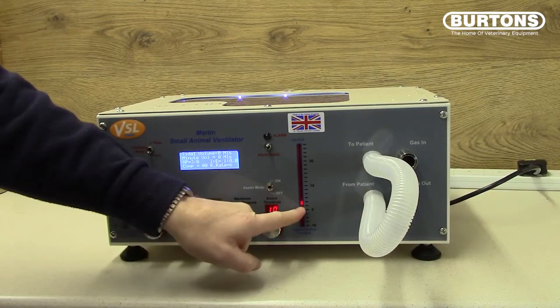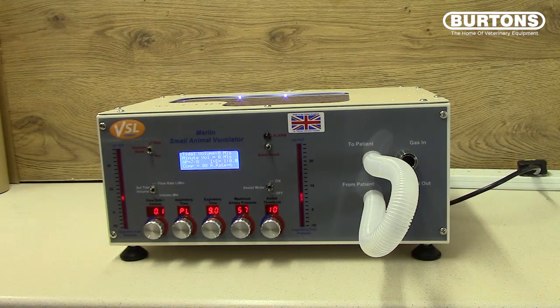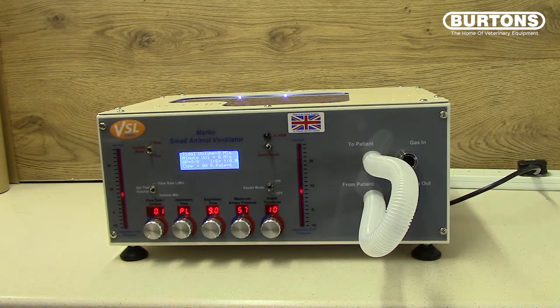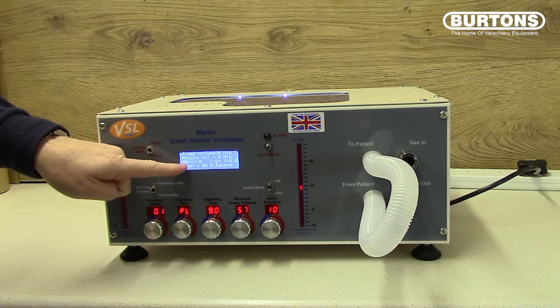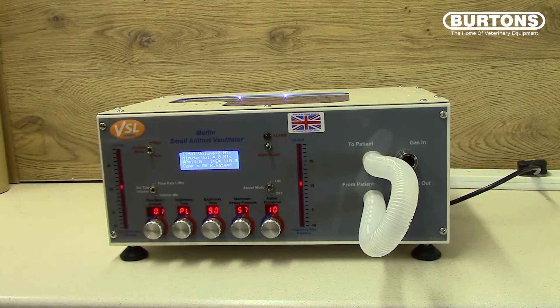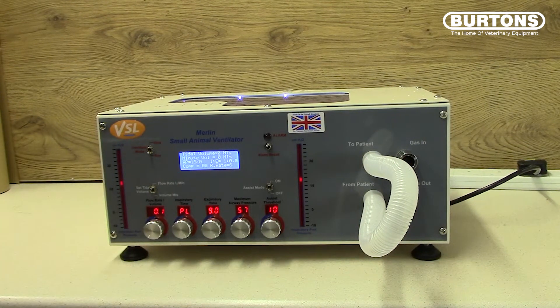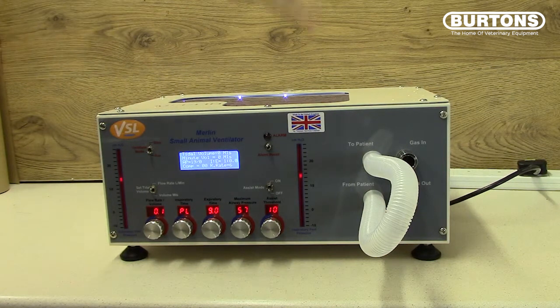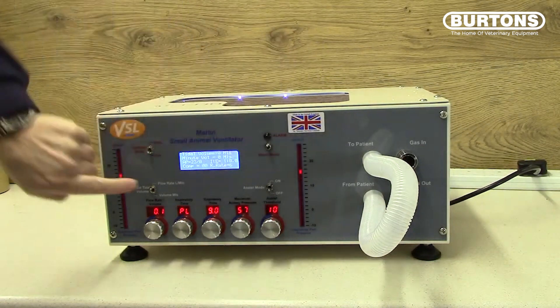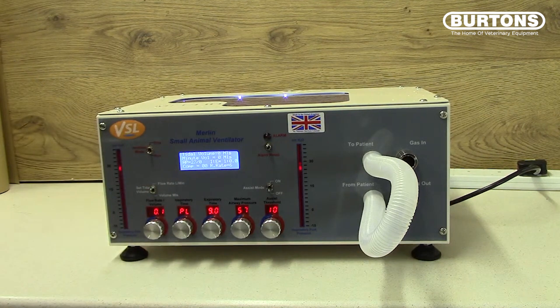You will also see the inspiratory bar graph and expiratory bar graph rise in value. On the screen you will see the airway pressure increasing. We are waiting for the airway pressure shown by the bar graph to reach the 57 that we have set, and this will be shown by the value on the screen.